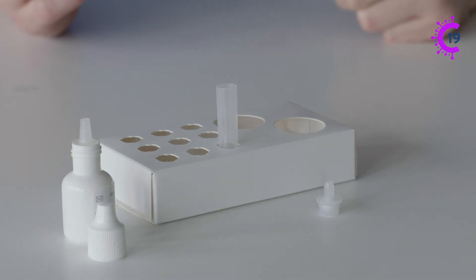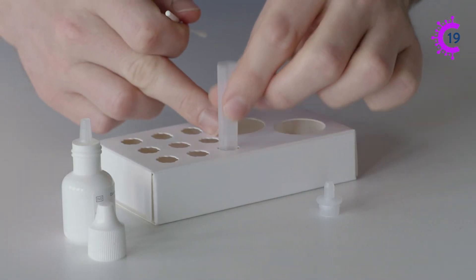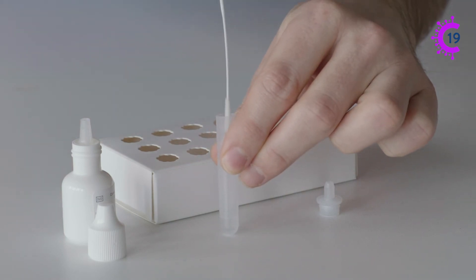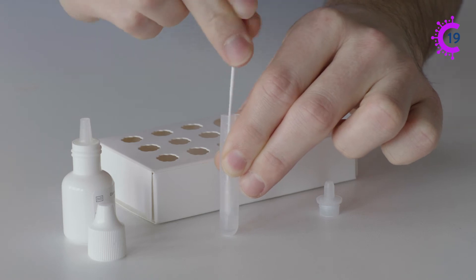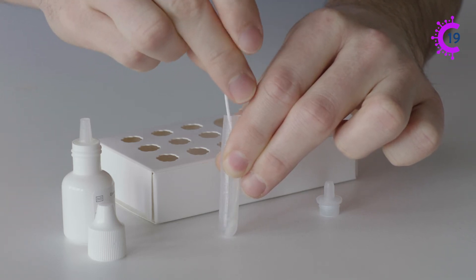Withdraw the swab and place it into the tube containing the buffer solution. Squeeze the swab around the edge of the tube at least six times and then leave the swab to stand in the buffer solution for one minute.